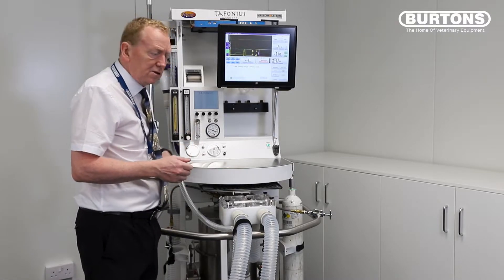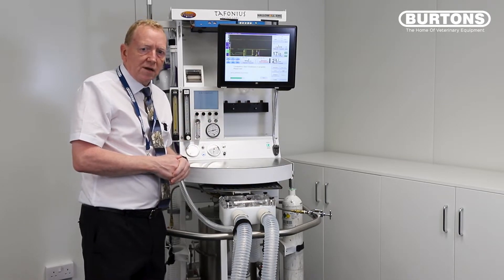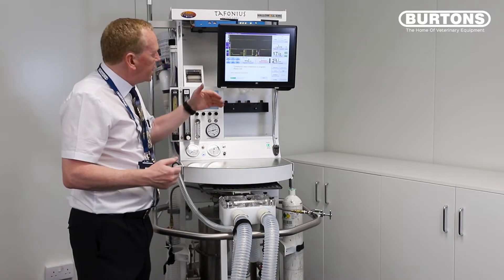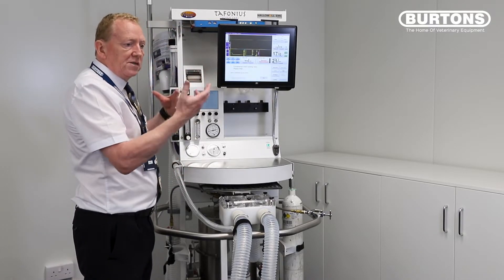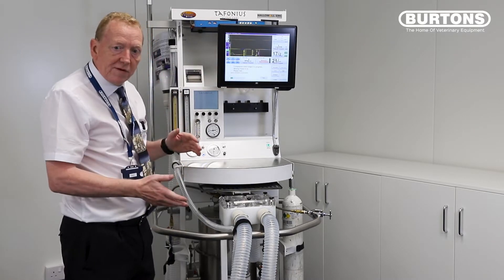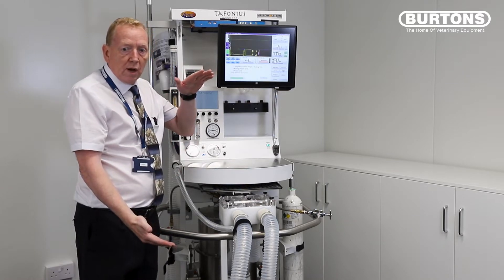It takes about 10–15 seconds to do. It tends to slightly over-exaggerate the leak because the rubber diaphragms inside just tend to expand slightly during the leak test. We've got a leak here of 240 mils, which is perfectly acceptable and what I would expect from the system with this automatic method. It then takes the piston right to the top, does the same process again — but this time it knows the leak so it can measure the leak and calculate the compliance of the piston at the top. Then it moves the piston down to the five litre position, repeats that, compensates for the leak, and calculates the compliance. We then know the compliance over the whole depth of the piston.